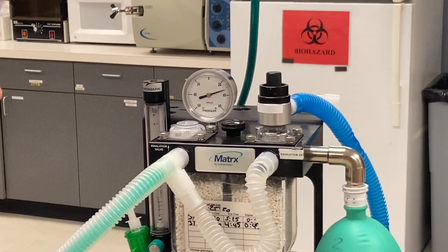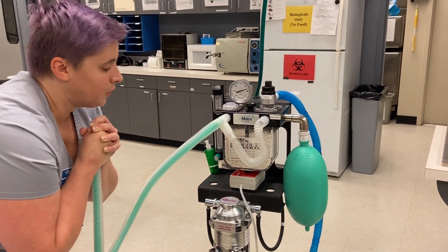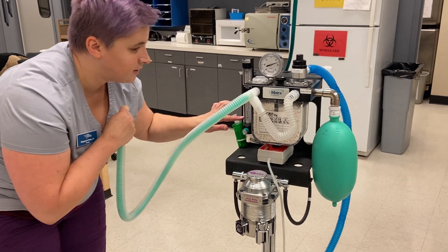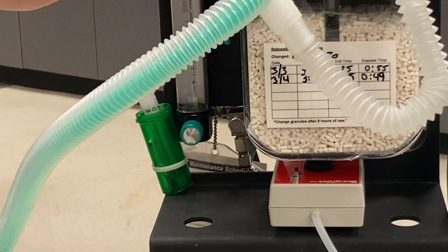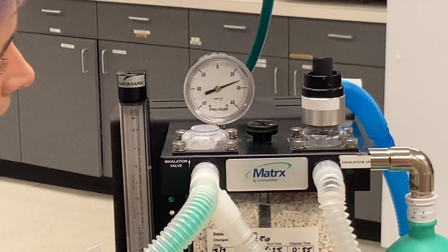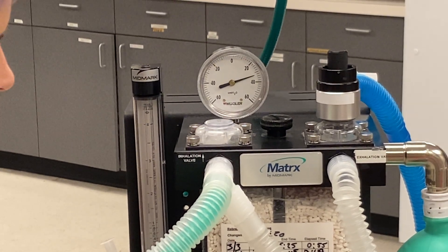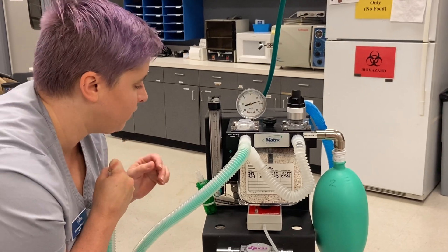It is very, very slightly leaking, which is great because I can show you what you can do for that. If you do have a teensy-weensy leak like that, you can turn your oxygen to 0.2 liters per minute — just this tiny little bit. And now watching again, it's not moving at all. That is the permissible, allowable amount a machine can leak and everyone still be safe — 0.2 liters per minute.